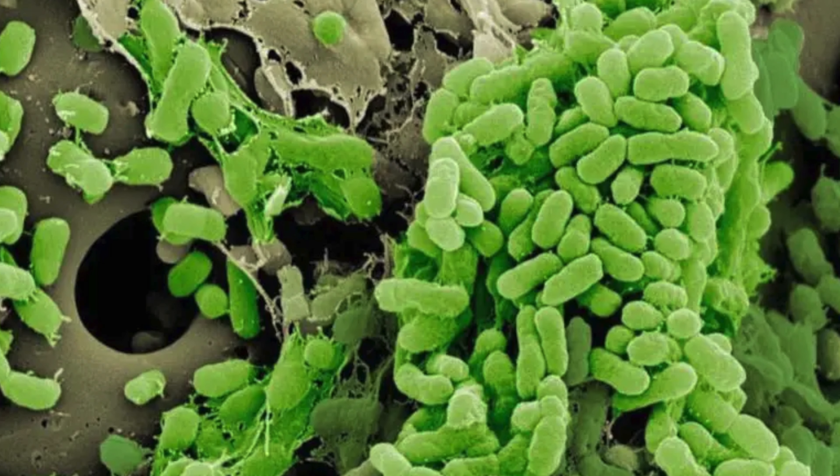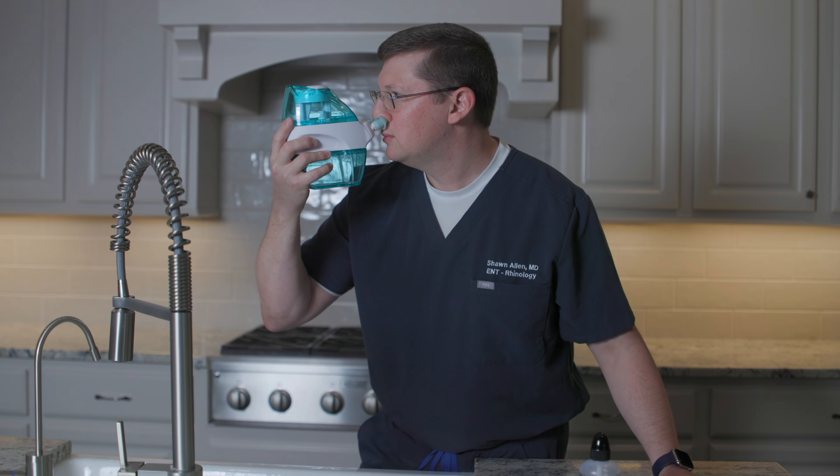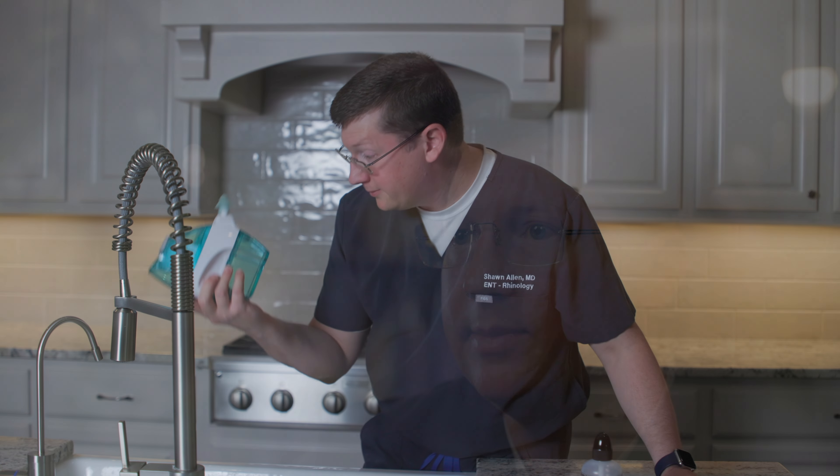Replace the rinse bottle about every six months as bacteria forming biofilms can be resistant to cleaning methods and worsen over time. There are powered rinsing devices available, and some patients prefer these over the traditional squeeze bottle. In my experience, suction power devices such as Navage are useful primarily when patients struggle with rinses entering their ears and throat when attempting squeeze bottles. These power devices may, however, limit the use of certain head positions needed to deliver medications into the sinuses or clean the nose properly after sinus surgery.